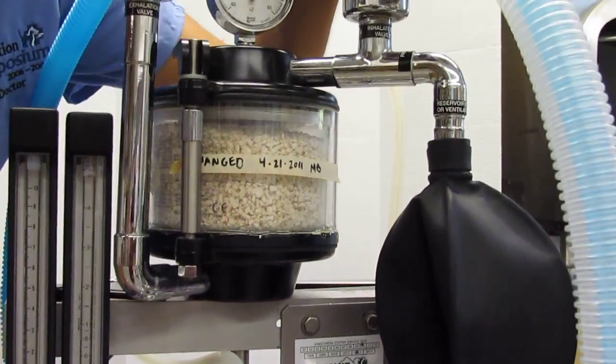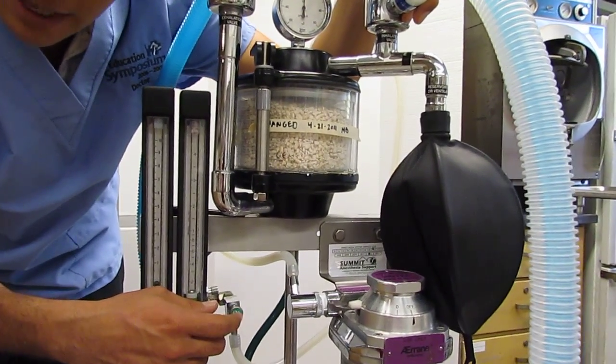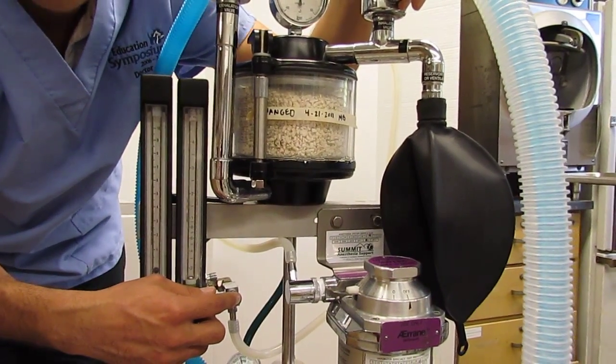which we're going to talk about in a second. One thing to keep in mind, you hear the oxygen going. It sounds like it's going at a high flow because it, in fact, indeed is.